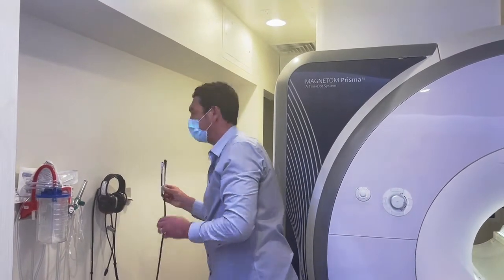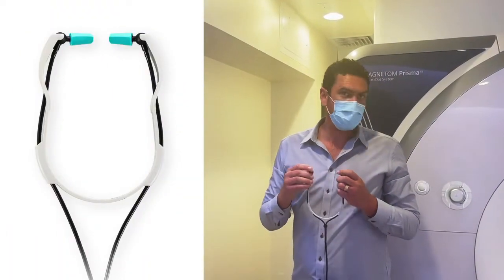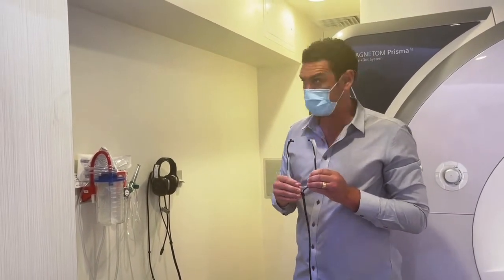For head and neck scans, we have our in-ear headphones. These use ear tips, which I'll show you how to use in just a second. They fit inside head coils and provide patients with 29 decibels of hearing protection.